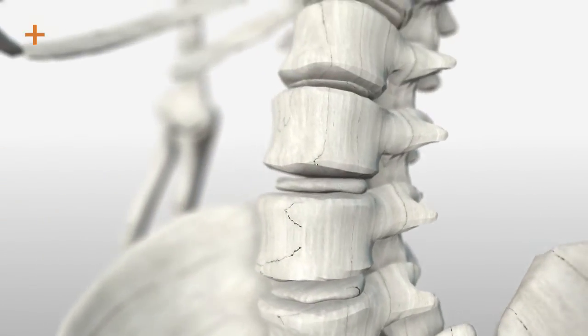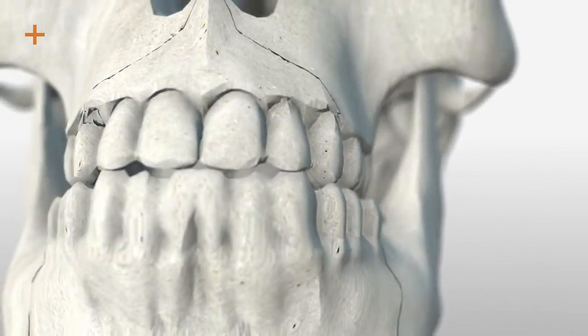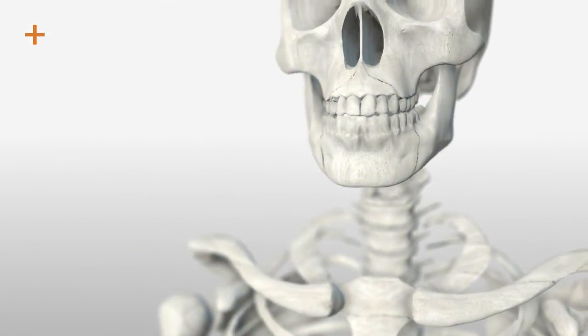Implants, materials and technologies are often necessary to rebuild bone structures and help the body to regain its functionality.